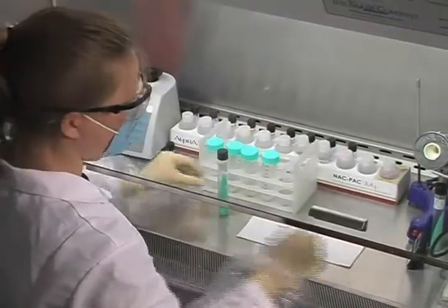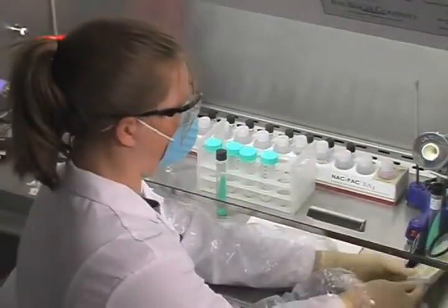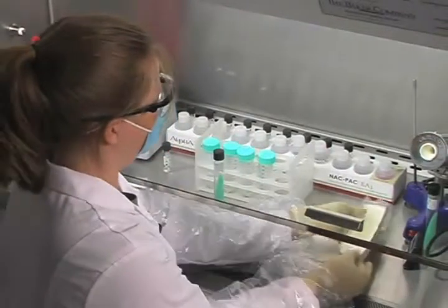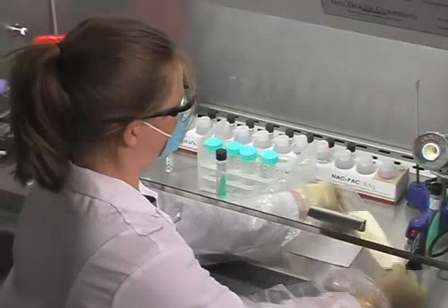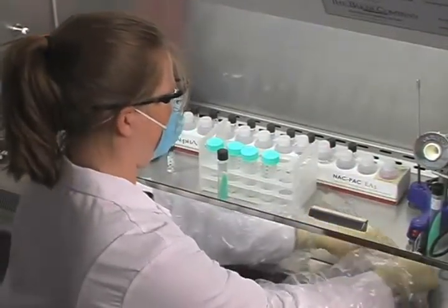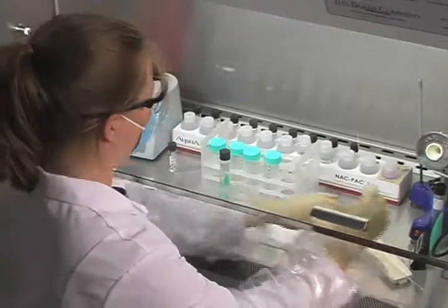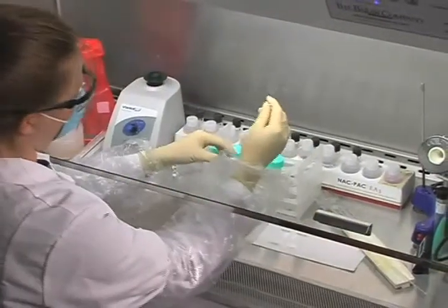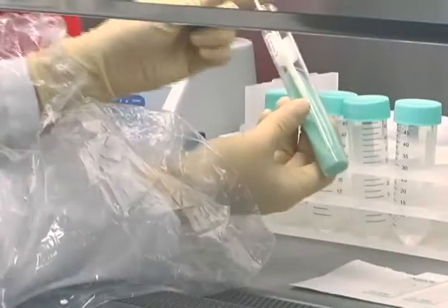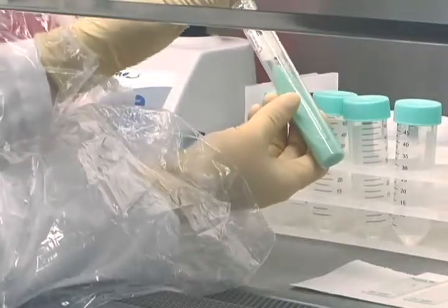There are many other types of specimens submitted for AFB processing which require different procedures. Stool and gastric aspirates, as well as processing specimens contaminated with Pseudomonas species, all require specialized procedures for recovering mycobacteria.